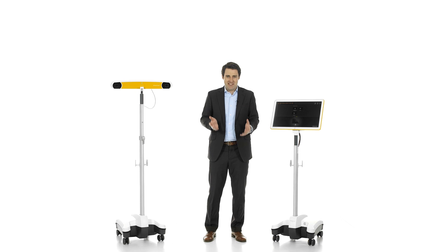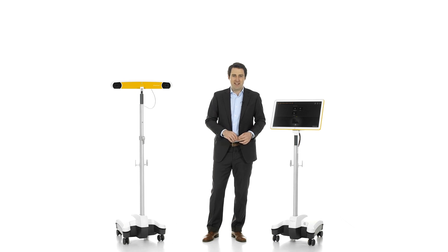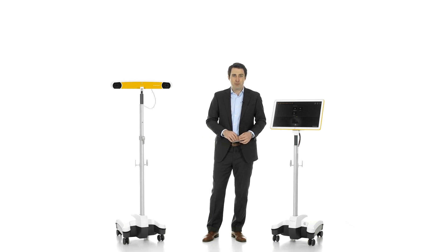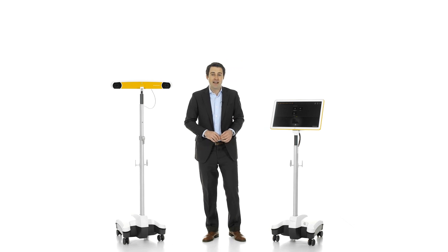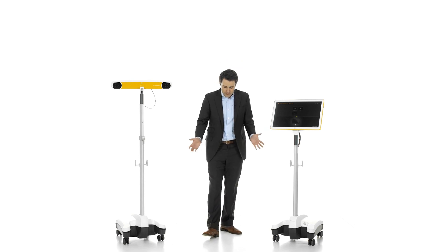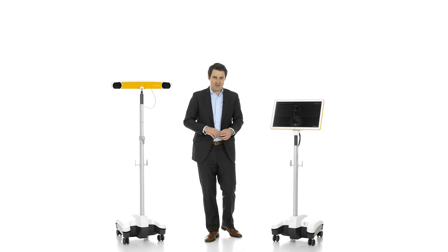Powerful yet sleek, KIK is sculpted with an intentionally small footprint, allowing for agility in the OR and enabling maximum use of floor space during navigation.